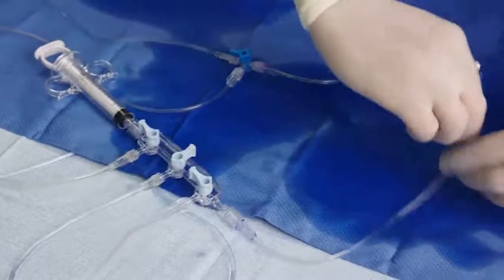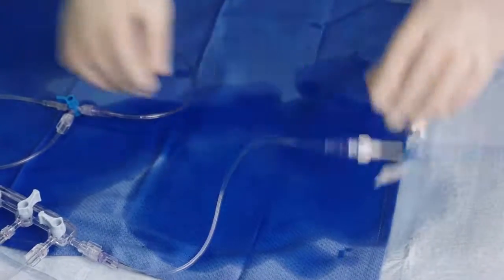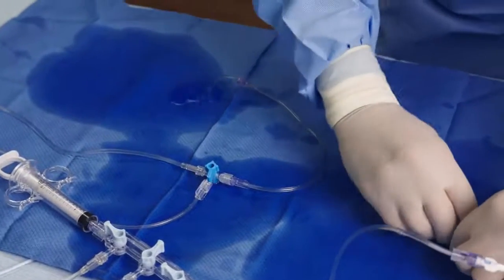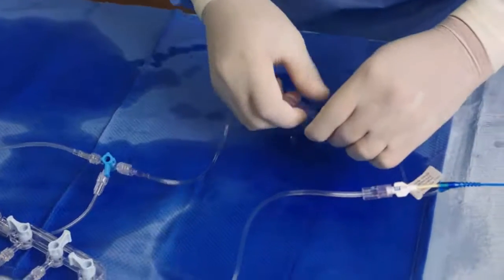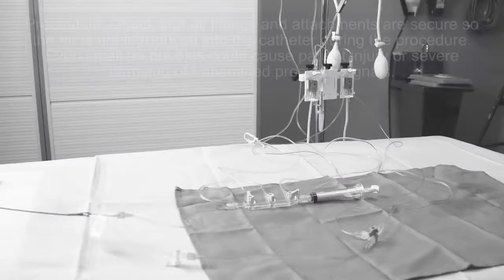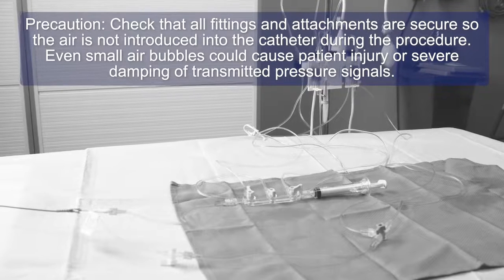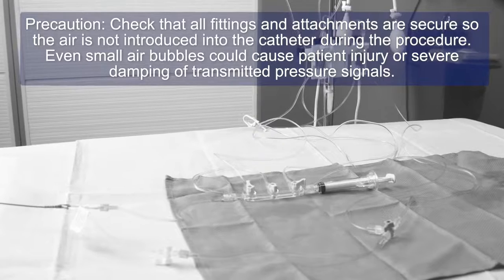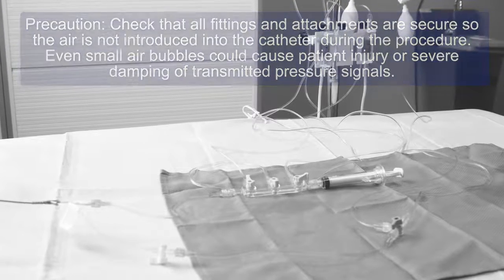Connect both lumens to pressure tubing utilizing fluid-to-fluid connection. If extension tubing is used, select a type which is as short and rigid as possible. All lines should be free of all air. Precaution: check that all fittings and attachments are secure, so that air is not introduced into the catheter during the procedure. Even small air bubbles could cause patient injury or severe damping of transmitted pressure signals.